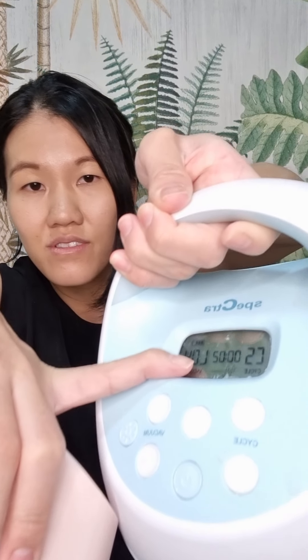Now down to the list of cons — no product is perfect, and I just want you guys to be aware of these. After going through most of the cons I don't find any of them a huge deal breaker, but I'll share them accordingly. The first con I found was that it does not have a timer and doesn't have a battery meter. The Spectra has a timer so you know how long you've been pumping. With this one you don't have that, but it's very easily negated with a timer on your mobile phone, so the trade-off is not very big.